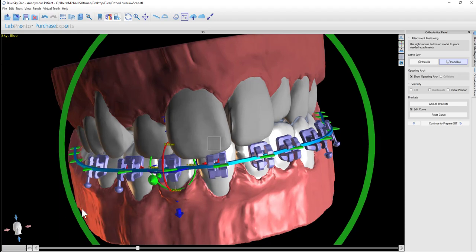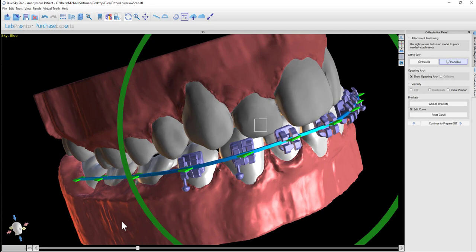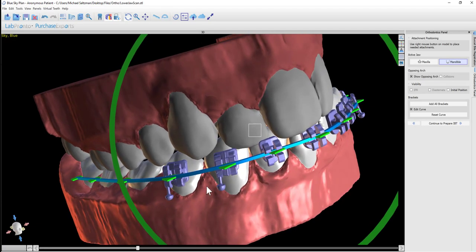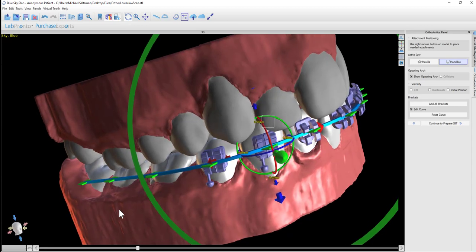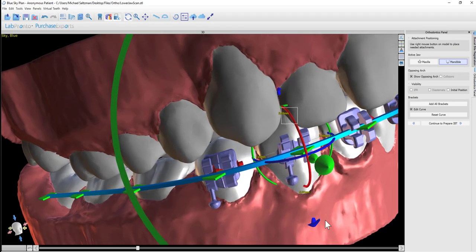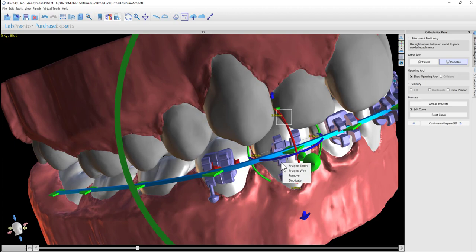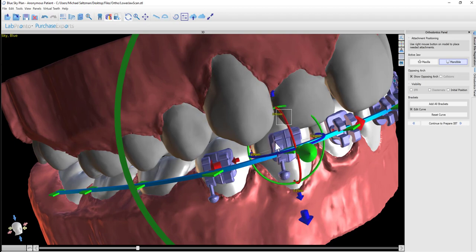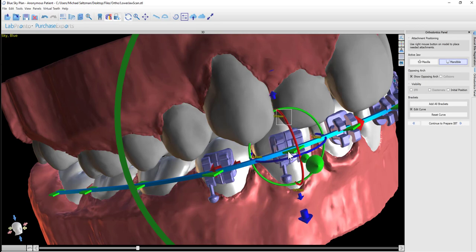In addition, if the tooth positioning is such that the software places the brackets aligned to the wire but as a result the bracket might interfere with the tooth — such as in the situation shown on screen — you can right-click on the bracket and choose snap to tooth, which will protrude the bracket out and align it to the tooth. If you then want to make sure it is perpendicular to the wire, you can click snap to wire.